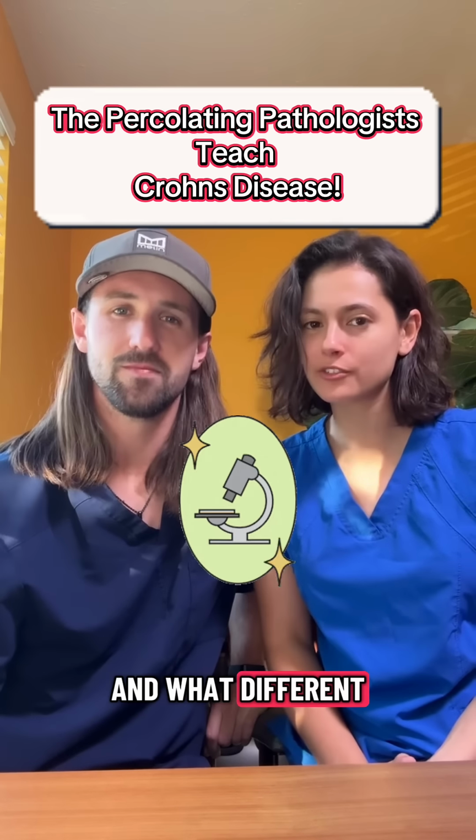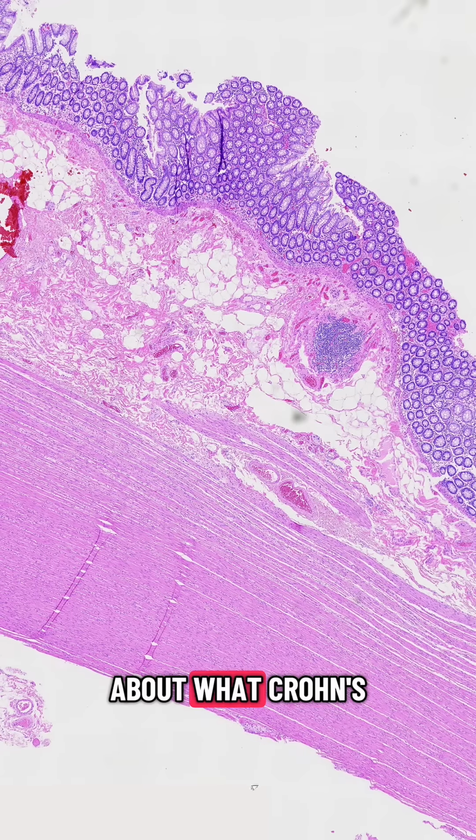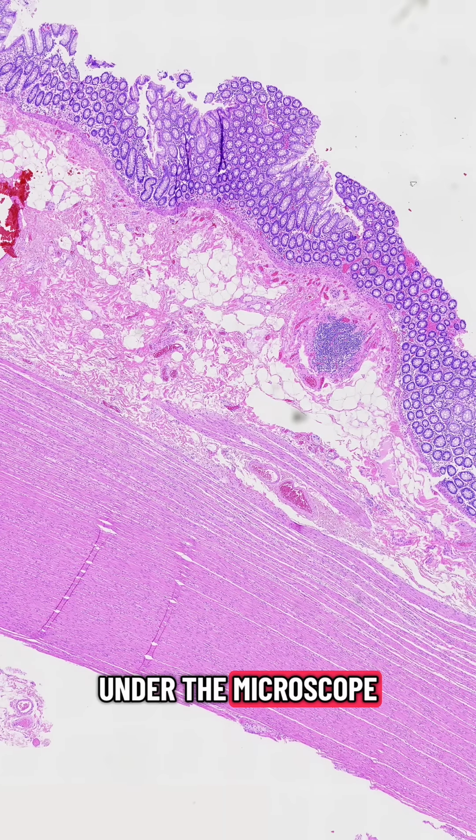We want to teach patients how pathologists are involved in their care and what different medical conditions look like under the microscope. In this video, we'll be talking about what Crohn's disease looks like under the microscope.